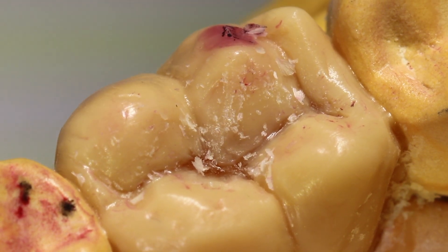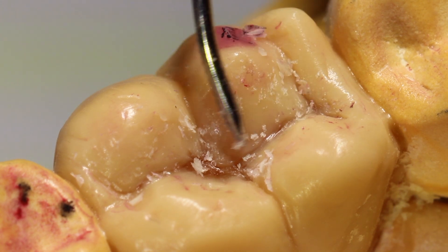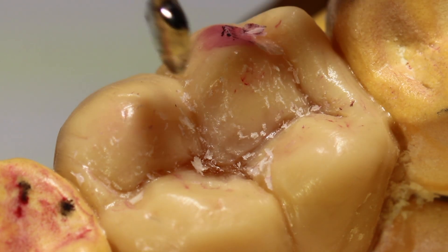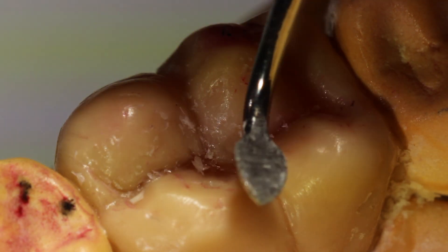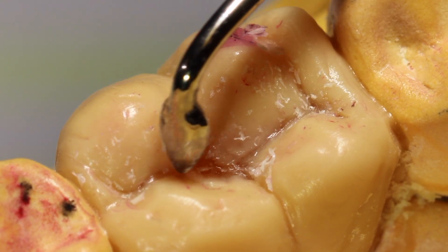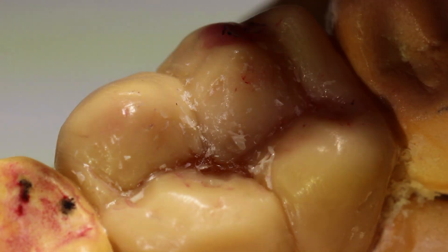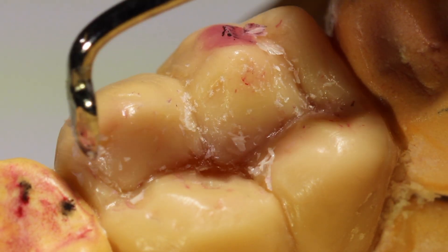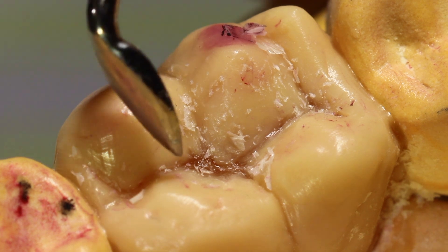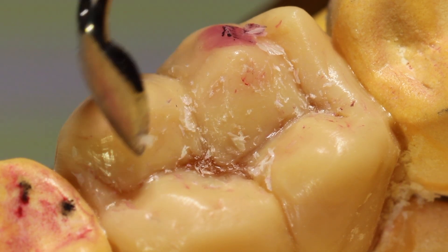The PKT instruments are all used in a similar way — we use them to burnish different surfaces of the tooth to smooth out rough lines and cuts that we may have made earlier. The next instrument is the discoid-cleoid. Here I have the cleoid end, the one that looks kind of like a pear, and I'll use this in the central groove to carve out the groove initially. You can also use the other side, the rounded discoid portion, in a burnishing motion as well. The Tanner Carver works in the same way, in cutting and burnishing motions depending on how you use it.